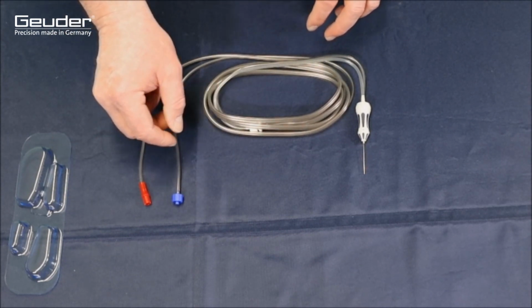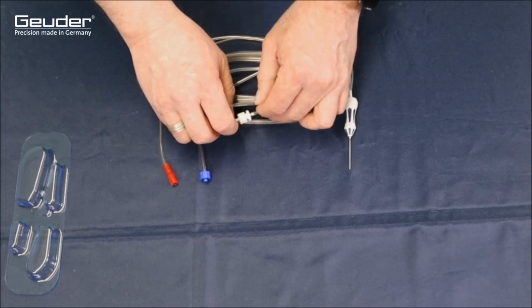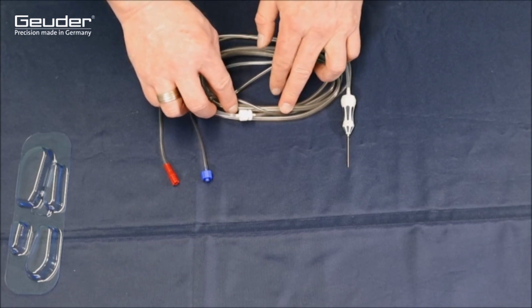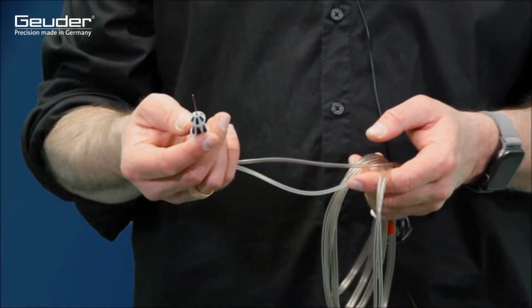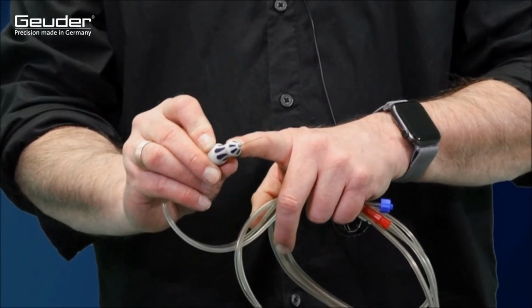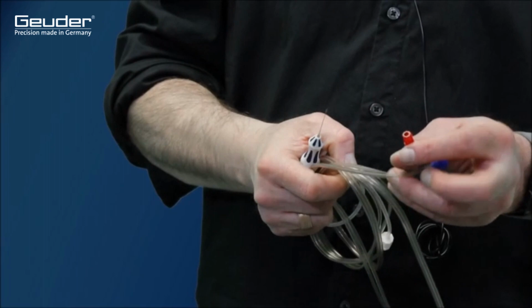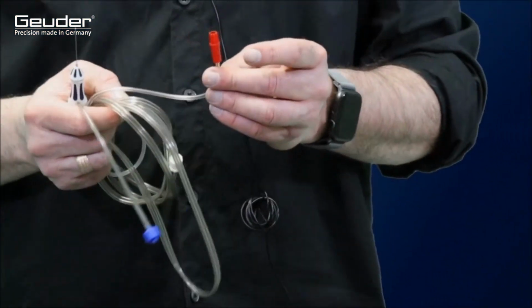There is also a hose separator that serves to shorten the aspiration line if necessary. And finally, the vitrector itself. The handpiece is coated blue. In this case, it is a 25-gauge vitrector. The red safety connector is to be connected to the corresponding counterpart on the cassette.